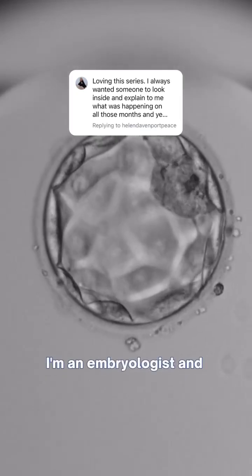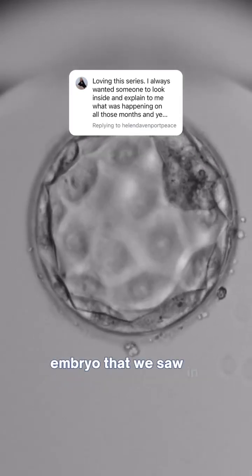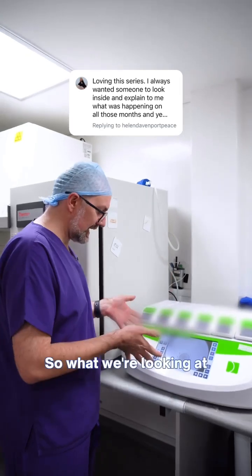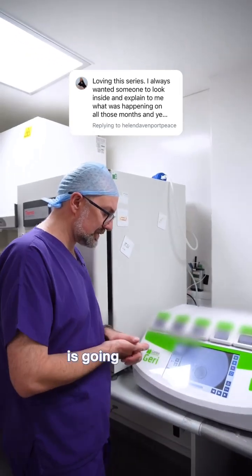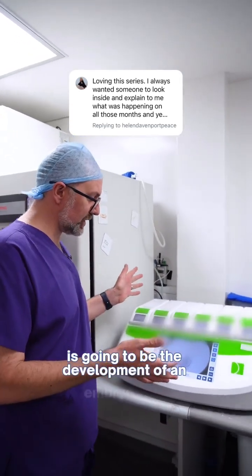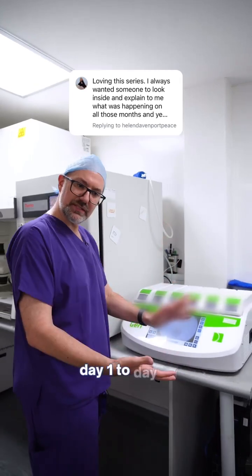I'm an embryologist and here's an interesting embryo that we saw in the lab this week. What we're looking at here is the development of an embryo from day one to day five.